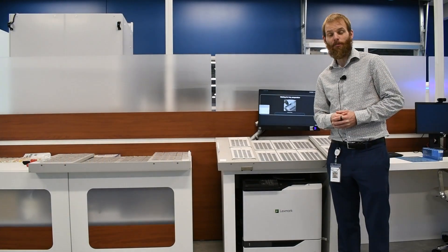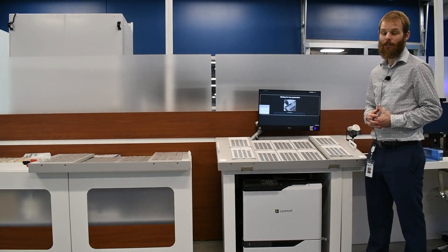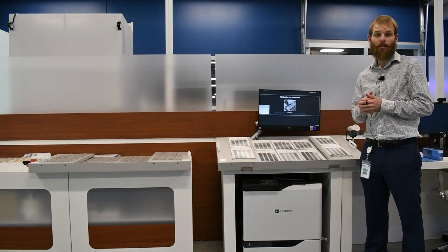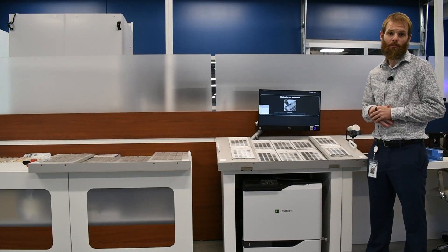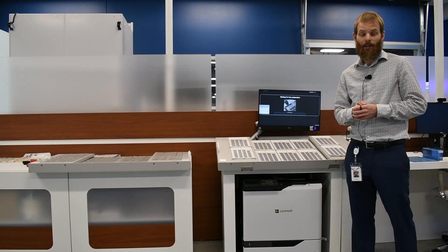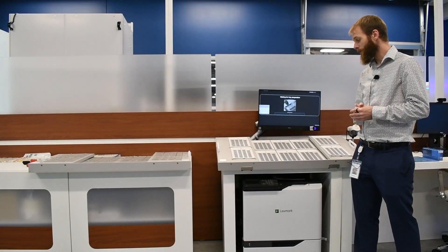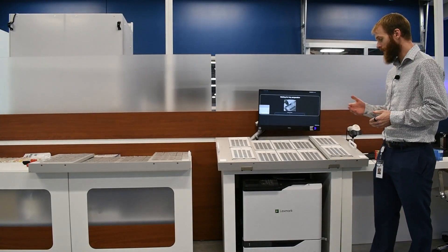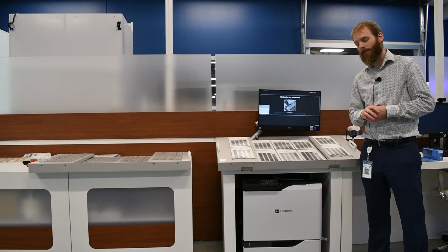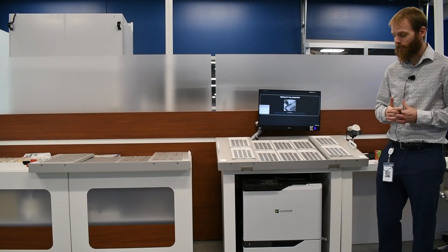Today we are going to be talking about our SynMed Assist solution. Our SynMed Assist solution is our partially automated blister card filling device. With this solution you can semi-automate the filling process of your blister cards in your environment.